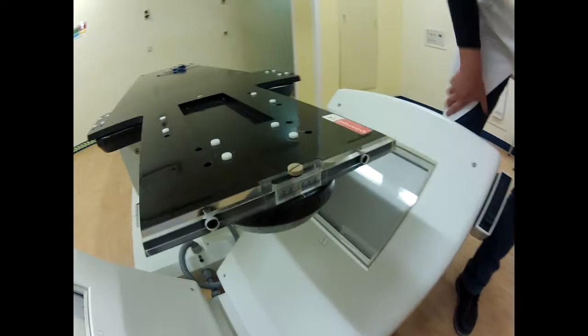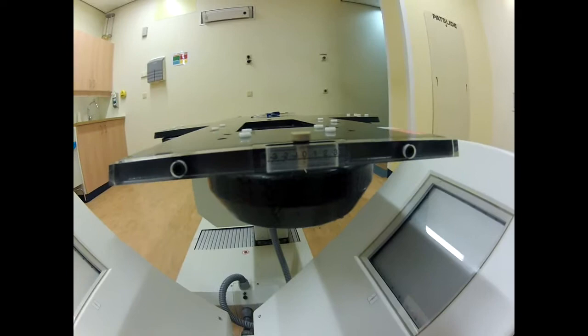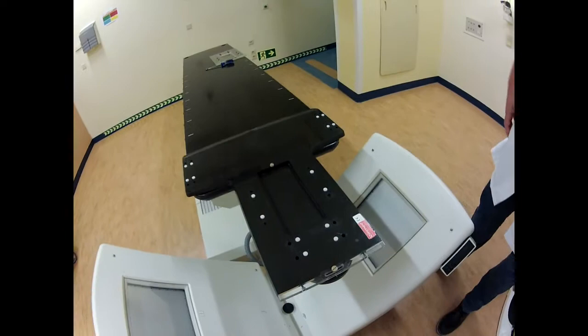There's also been made a degree... there it is. I hope you can see this, Sebastian. So you can estimate how far you have to turn the head and neck plate to get your clockwise counterclockwise rotations back to zero during treatment.